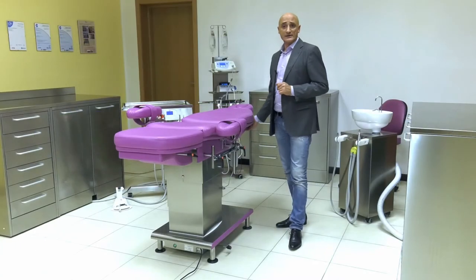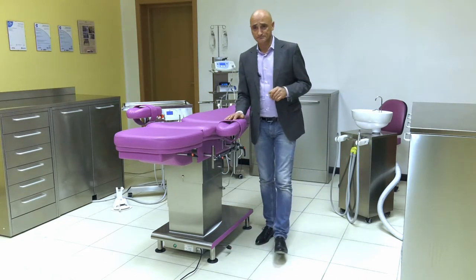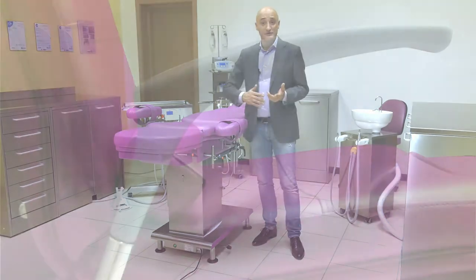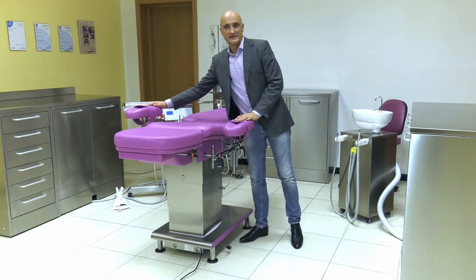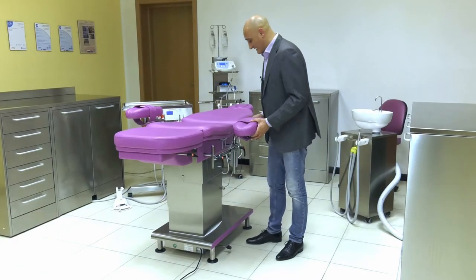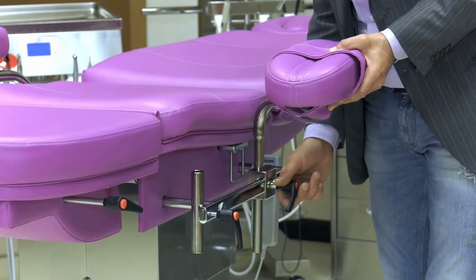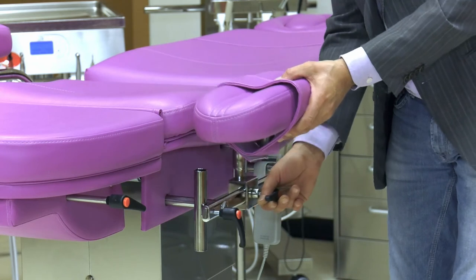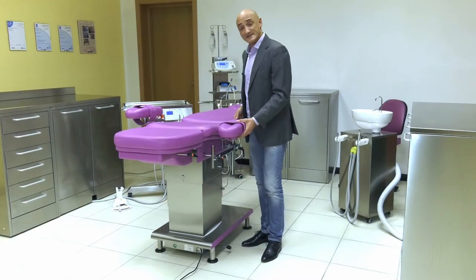The back of the chair has been designed to allow the doctor's knees to fit nicely beneath it. It is possible to choose a left or right standard armrest, where the right armrest is pivoting and one of the two armrests has a rest for blood tests anchored to the side on a guide. The advantage of these armrests is that they can be positioned in any way — assembly is easy with the knob and guide, and once assembled it allows sliding the clamp.